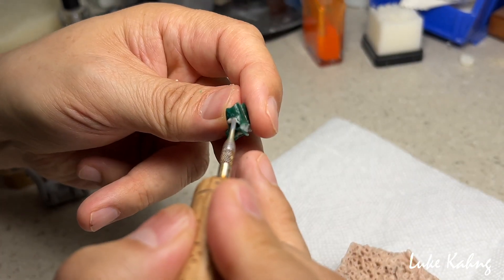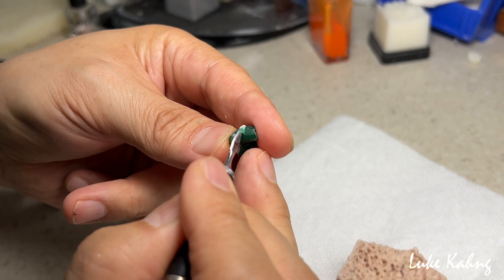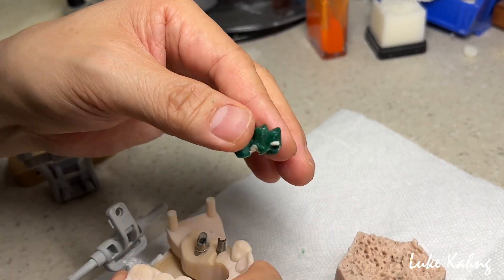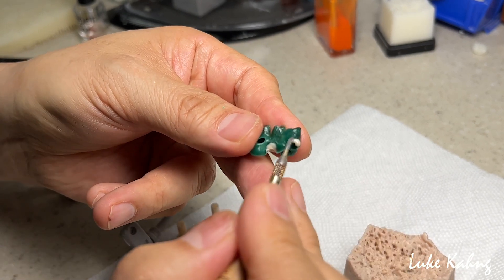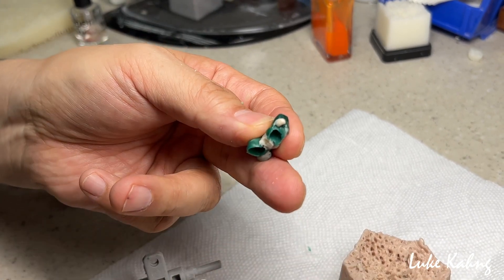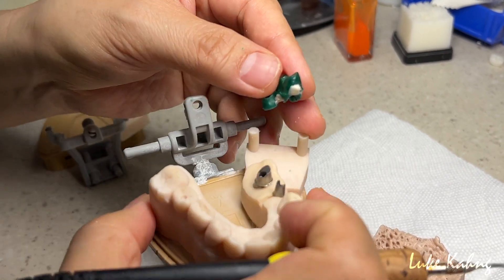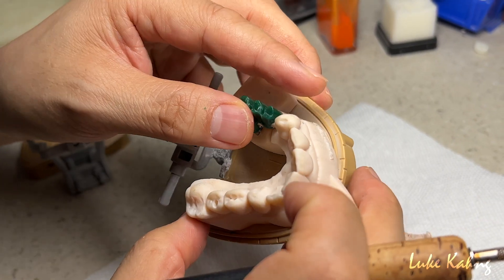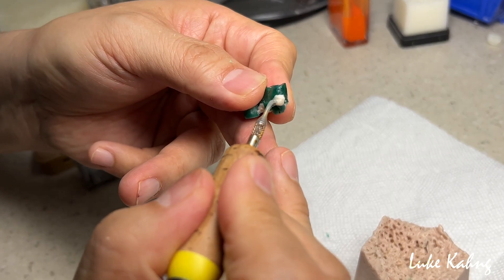Okay, here's the line. I'm not going all the way — halfway. Then my marginal is up high. I have to add more, then I completely fill. I can add a little more here, so that area is metal but underneath I'm going to make it a little bit open.